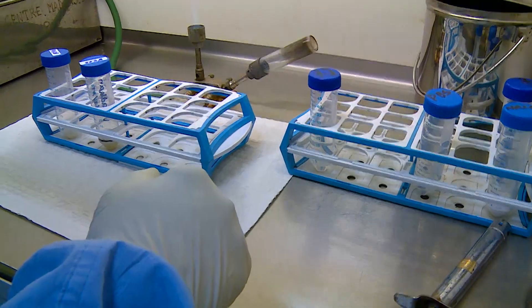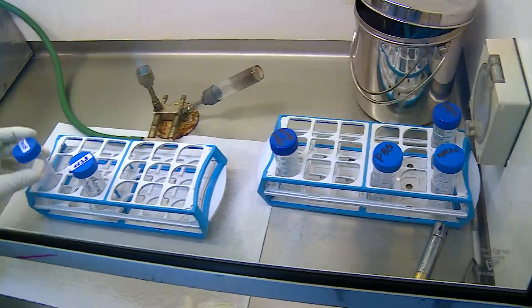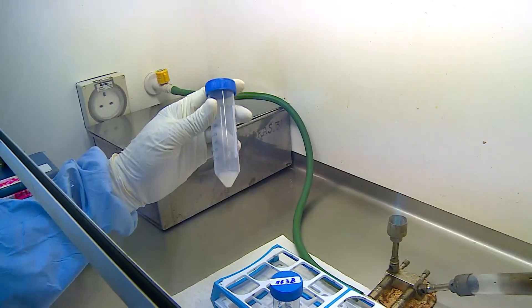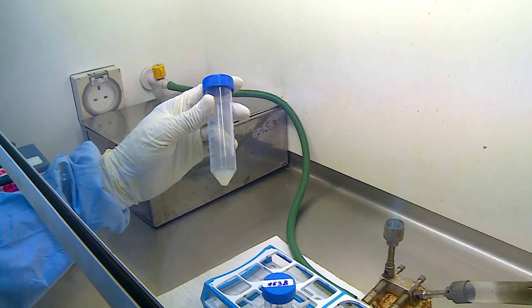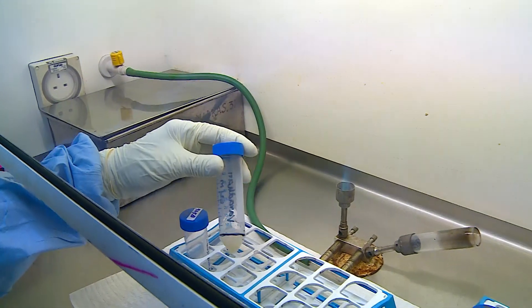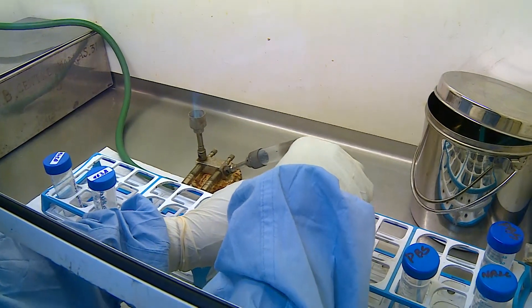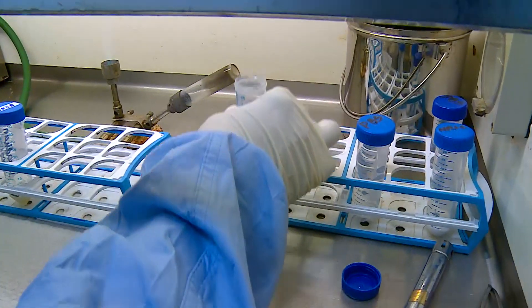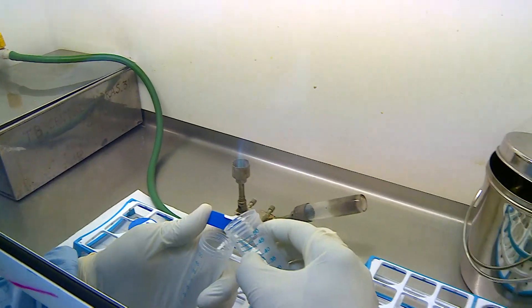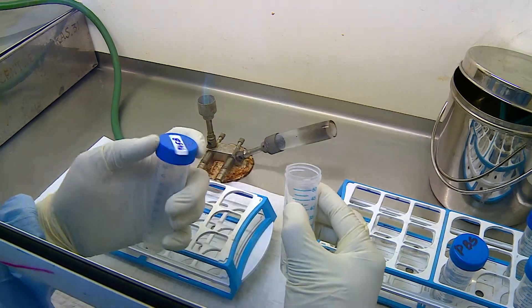Here we have 2 specimens which are going to be processed. Each tube contains about 3 ml of sample, so an equal volume of freshly prepared NALC-NaOH mix will be added to the sample. Care is taken to ensure that the solution does not touch the mouth of the tube during addition.